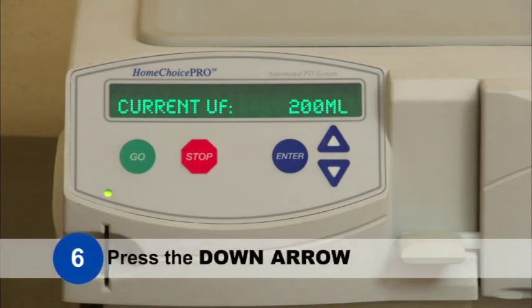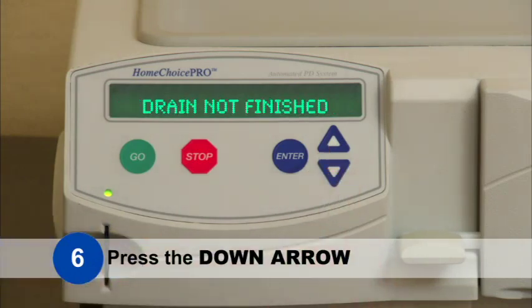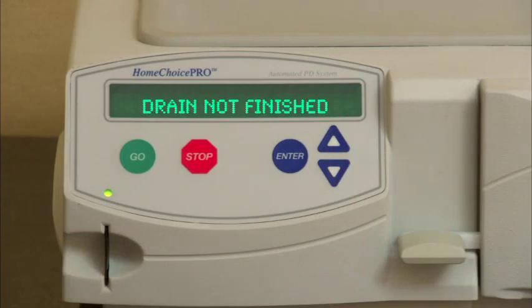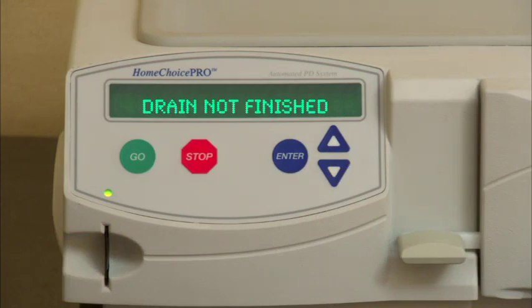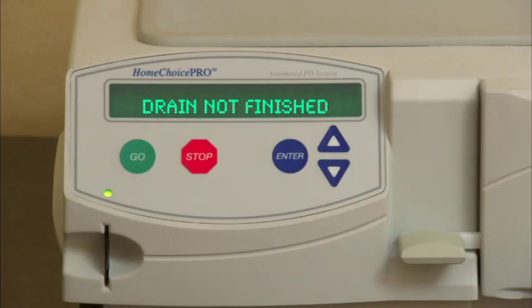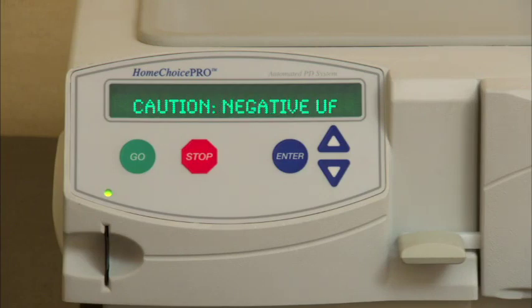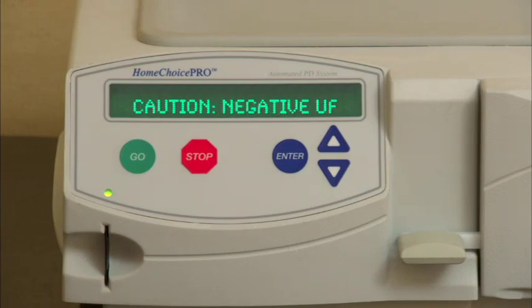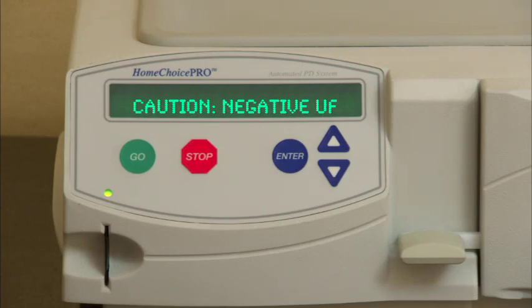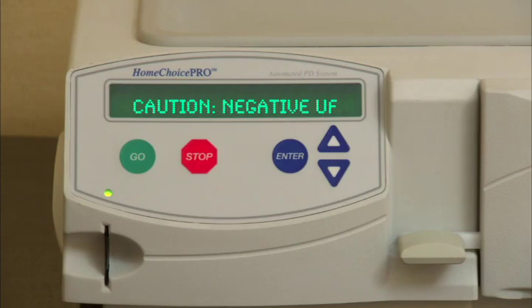Step 6: Press the down arrow again. A drain alarm message appears. The 'Drain not finished' message is displayed if the current drain phase has not reached the minimum drain volume required. A 'Caution Negative UF' message is displayed if the patient has retained more than the allowed percentage of the programmed fill volume in either the current cycle or over the course of several cycles.